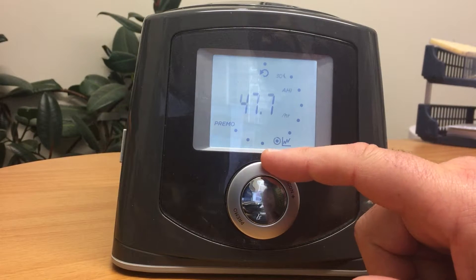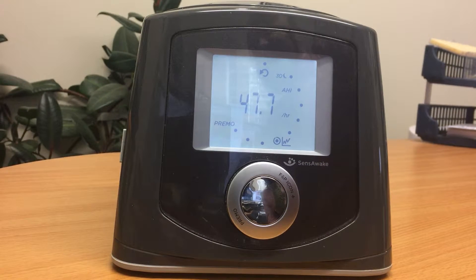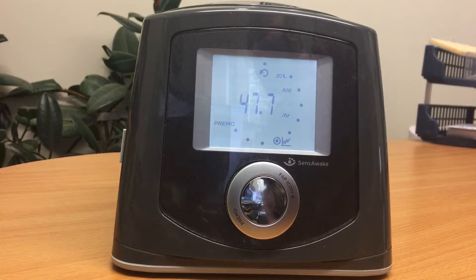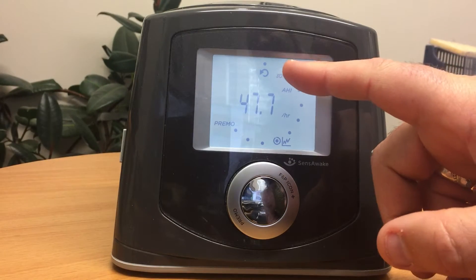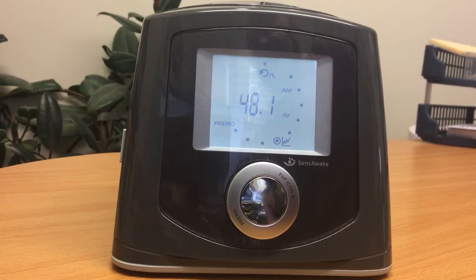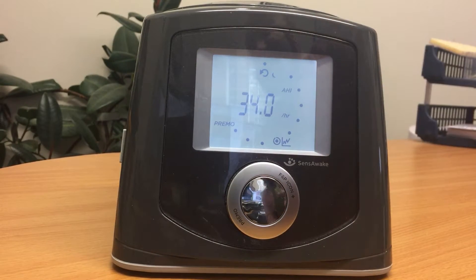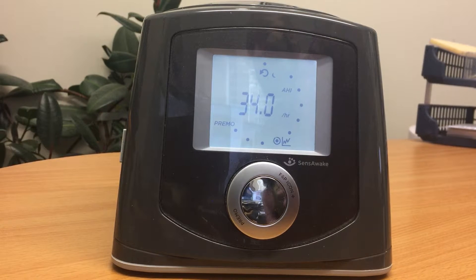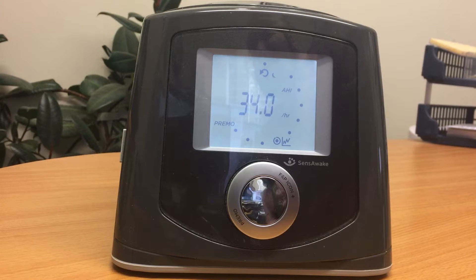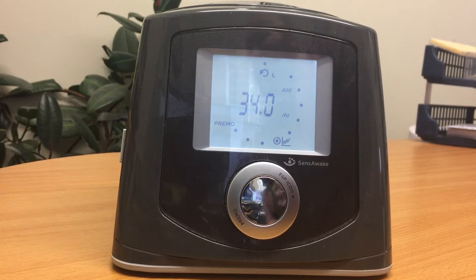Turning to the next setting is the one of most interest to clinics — the apnea hypopnea index, or the number of times the machine has detected pauses in breathing. It's averaged over 30 nights for the first figure, then seven nights, then last night. In this case, the patient has complex sleep apnea and is averaging about 34 events per hour — meaning the machine is detecting him taking longer than 10 seconds between each breath.